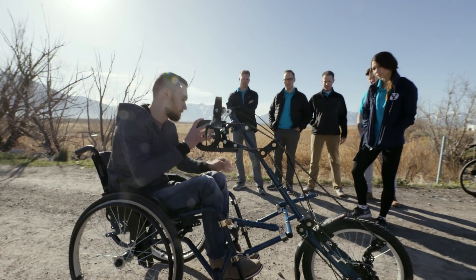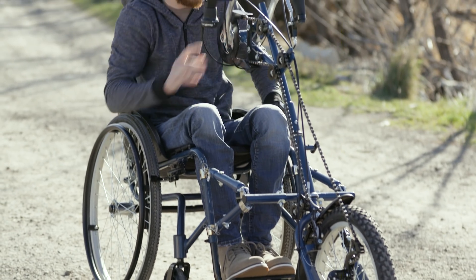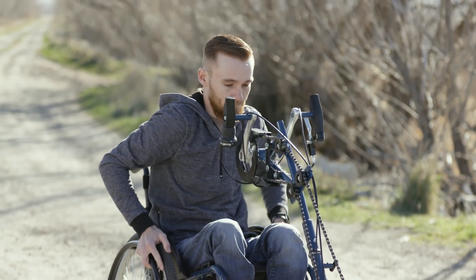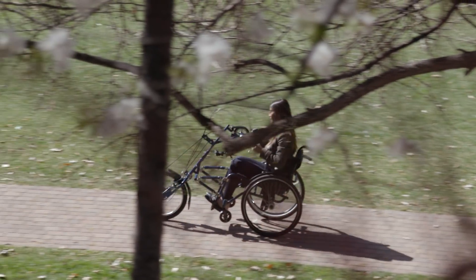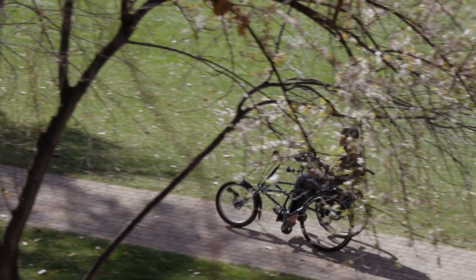The project that LDS Charities approached us with is to design, create, and prototype an attachment system that will attach to the front of the wheelchair, transforming it into a chain-driven, multi-geared pedaling system. This gives users a continuous pedaling motion so they can travel longer distances.